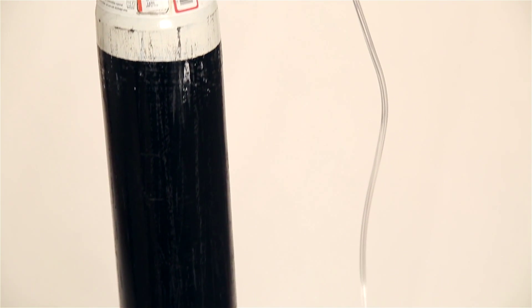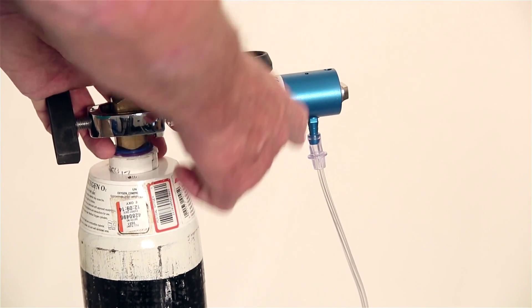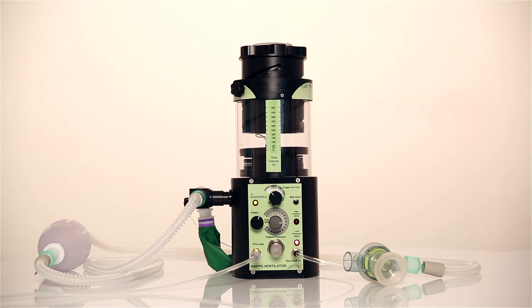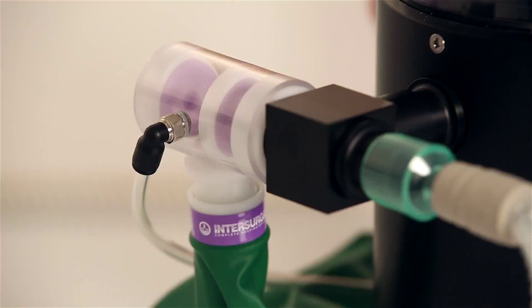If the gas source is from an oxygen cylinder, the drive gas tube is connected to the cylinder 4 bar regulator. If oxygen is the drive gas, it can be recycled into the patient circuit to increase the FiO2 through this tube from the drive gas outlet to the circuit block.